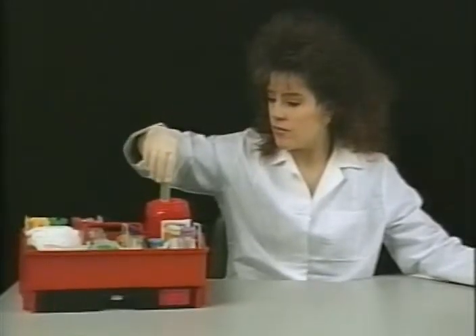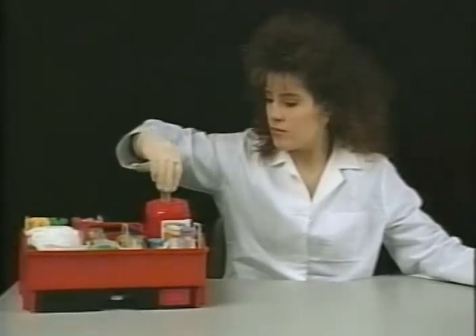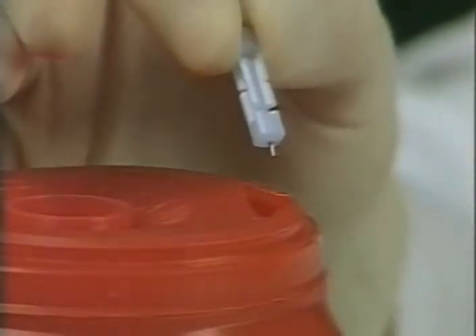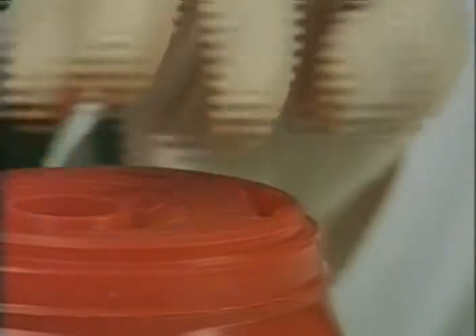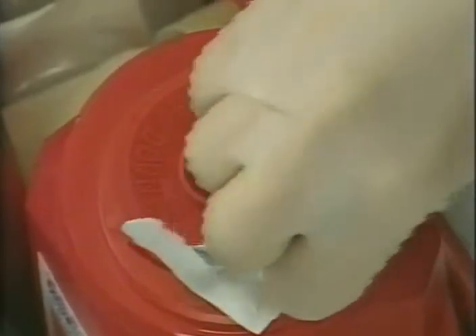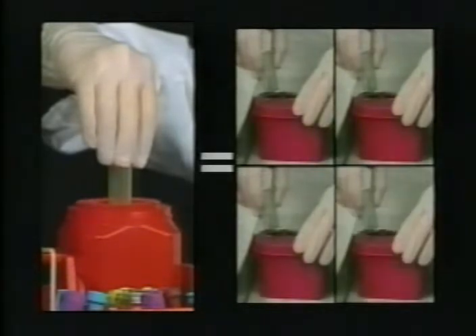The AND unit is designed to safely, quickly, and conveniently dispose of approximately 200 blood collection needles of various sizes. A slotted opening is provided on top of the AND unit for disposal of most lancets. Because the AND does not accept extraneous waste such as needle caps, gauze, band-aids, etc., users report the AND unit will outlast three, four, even five open-top containers.